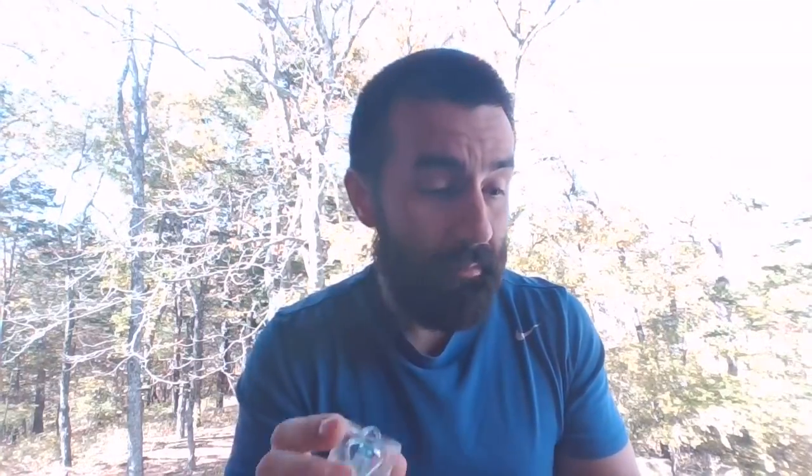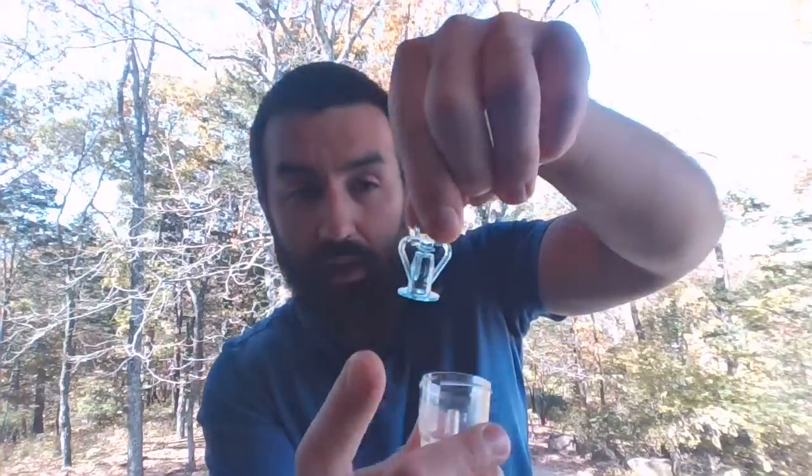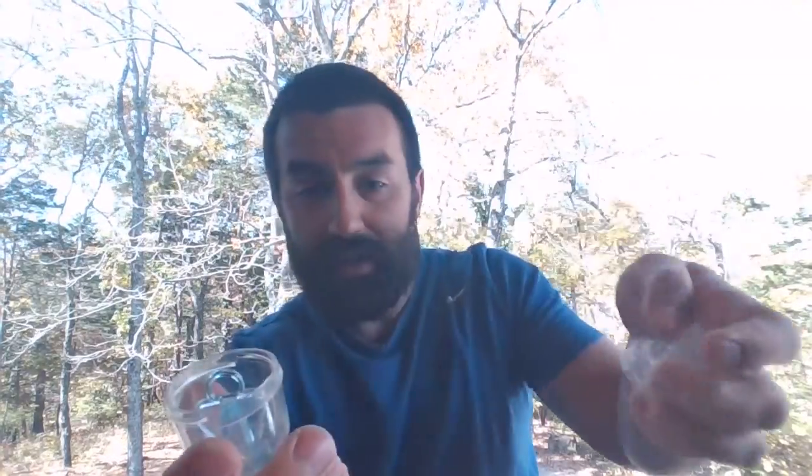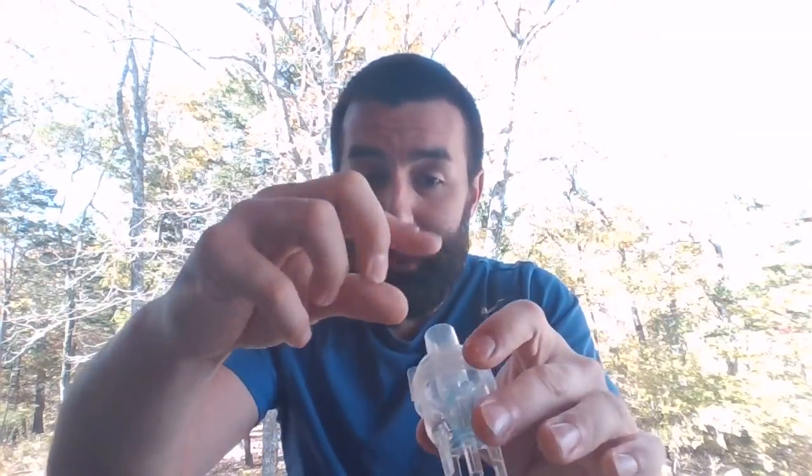So all of them have a baffle. Some of the baffle designs are a little bit different. This one is built into the little sleeve that goes over that center post here. Okay, screw that back on, make sure it's snug. Now, as far as putting medication in them, you can squirt it right in through this thing, or you can open it up and spray it in. It doesn't really matter. It is important to know how to take these apart because we're going to rinse these with sterile water, at least per CDC's guidelines, afterwards and allow to air dry, okay?